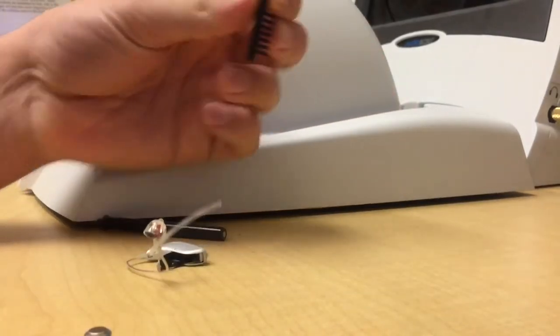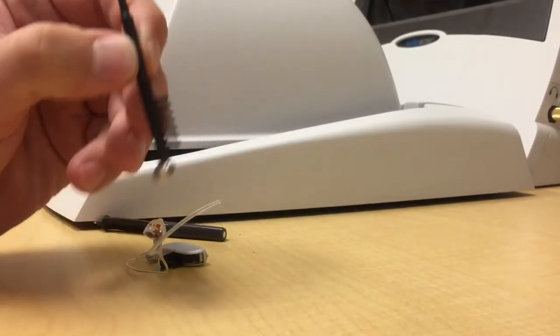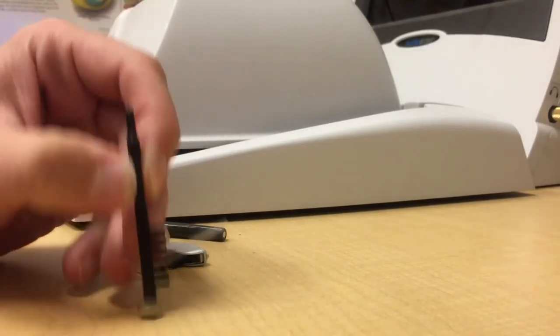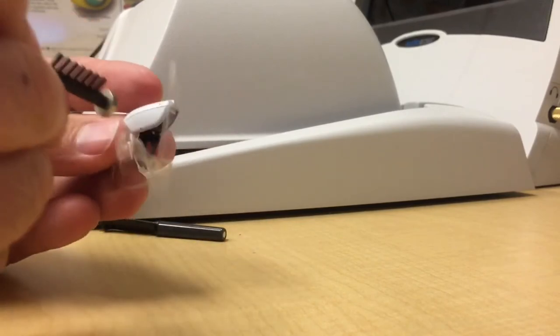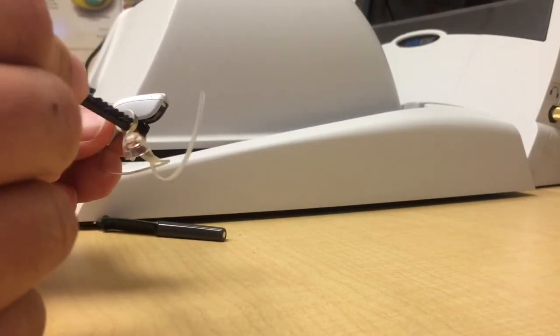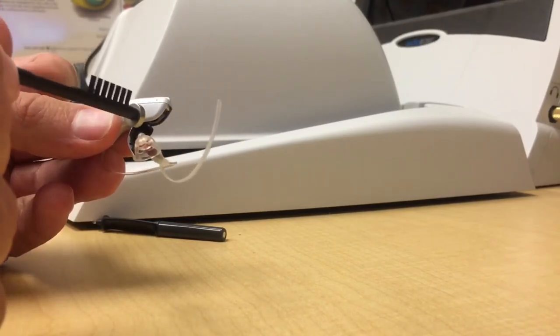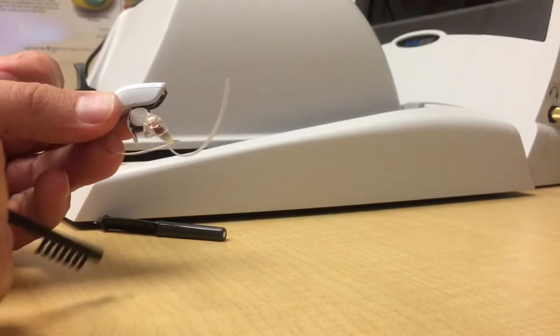You can get ones much cheaper that cost less than $1 each. These still work with batteries. However, the battery or the magnet is just not quite as strong. So sometimes the battery wiggles on the door. You can still insert it or remove it, but the magnet is just not as strong. But both of them work. You can choose which one you want to try out.